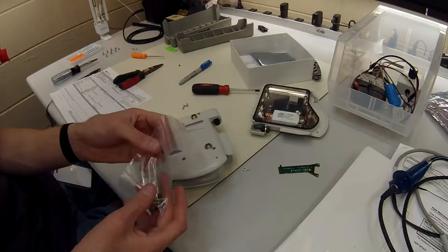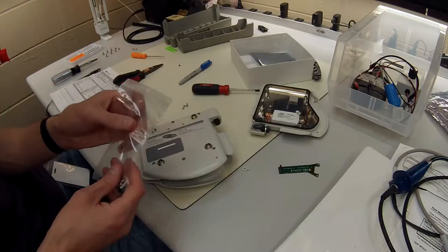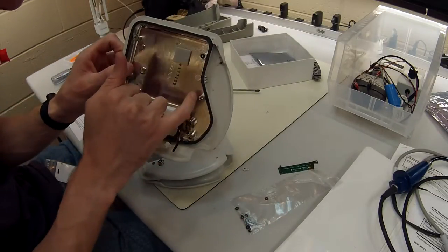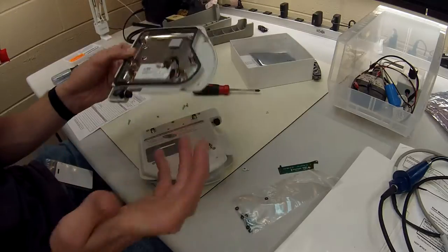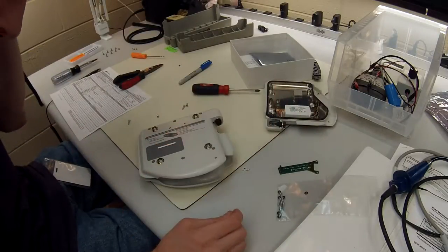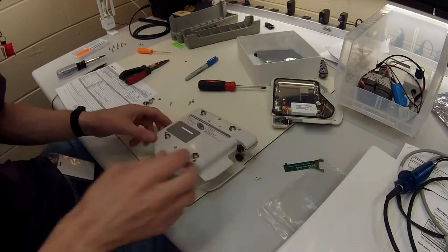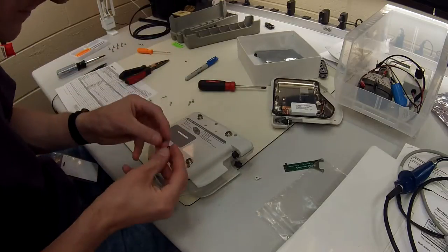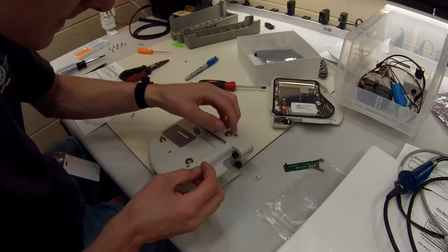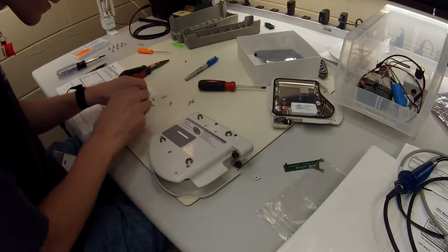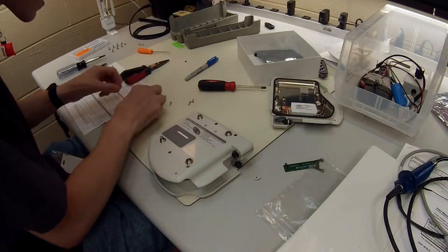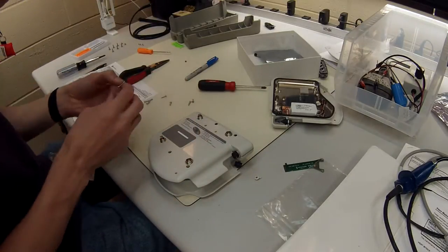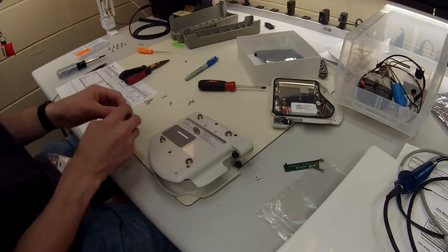After that, they also give you brand new screws and washers. So you can reuse the old ones or you can put the new ones in. Most of the time the washers actually stick inside. There's no screw in this one, but the washers are stuck on the inside, so I just go with all these brand new ones. The final step in this whole process, well the final assembly step, is to put the washers in the holes, which is going to be six black washers. You're going to want the longer screw here.